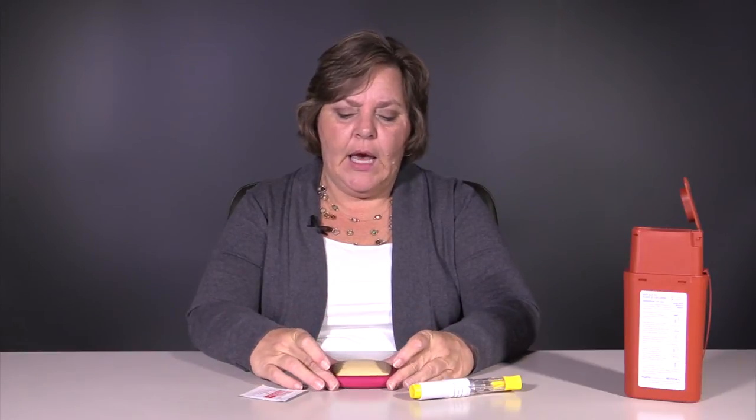This is going to serve as our skin today. Generally, people will inject in their abdomen or their belly. If you choose to do that, that's great, but stay about an inch away from your belly button. The other good place to inject are the sides of the thighs, especially up towards the hips — where we sometimes call that the saddlebags. That's another good place for injection.